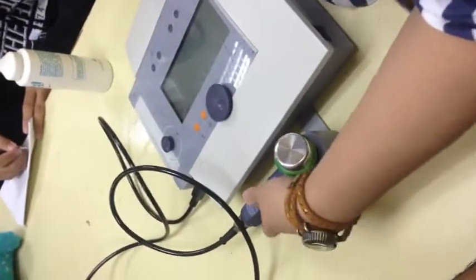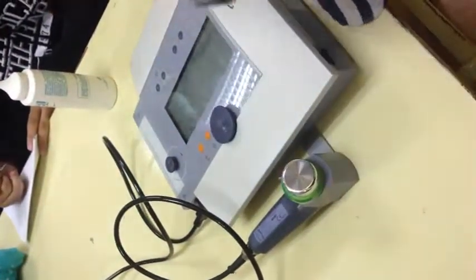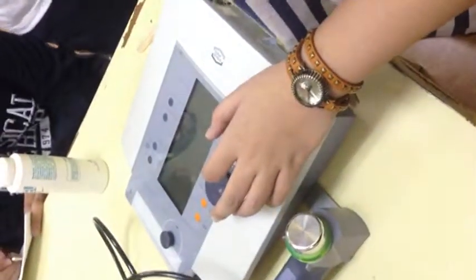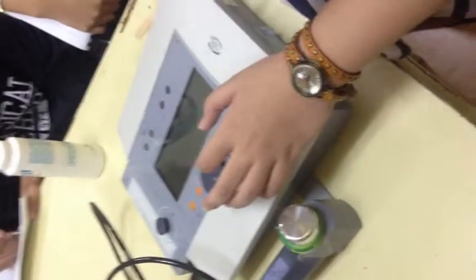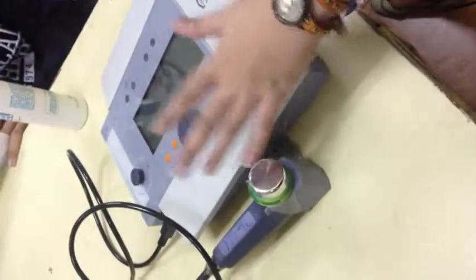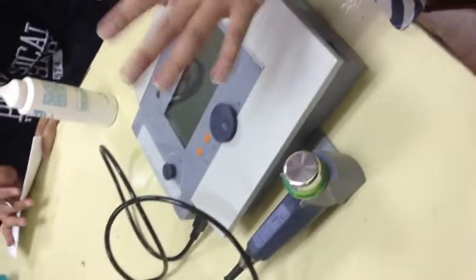So, dito sa machine na to, yung head niya, automatic, kapag hindi naka-in contact yung head sa surface na iti-treat mo, hindi siya nag-i-emit ng sound energy. Okay? So, hindi natin magiging problem yung crystal sa loob. Unlike dun sa malaking machine kanina na kailangan, di ba, gumagalaw ka na bago mo increase yung intensity kasi nag-i-emit na siya ng sound. For this one, as long as hindi in contact yung head sa surface, so walang sound energy na nare-release.